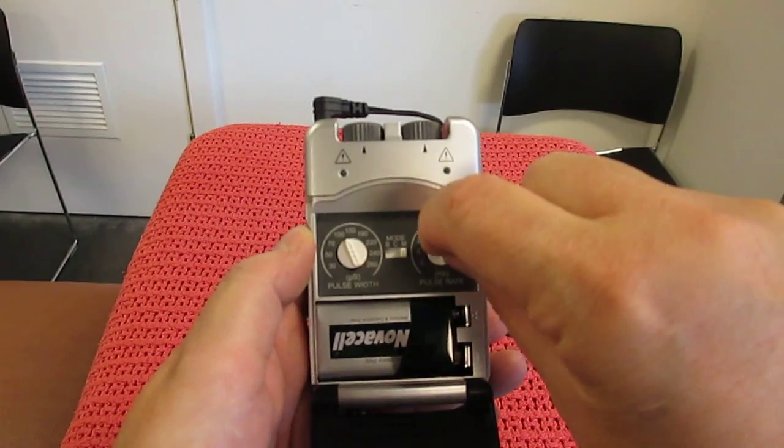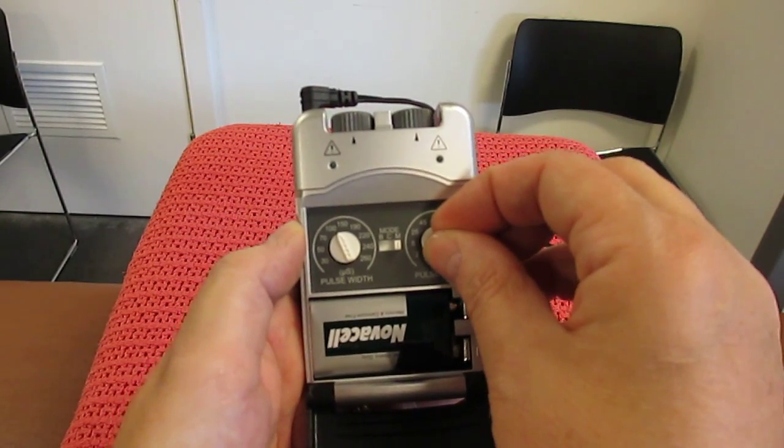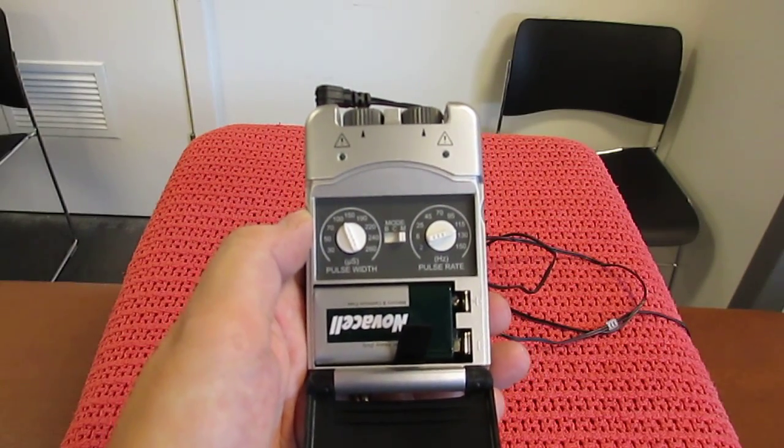We'll turn it all the way around until we get to between 115 and 130, so we're looking at 120.